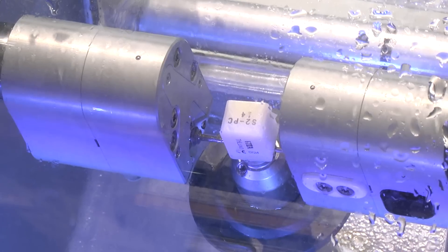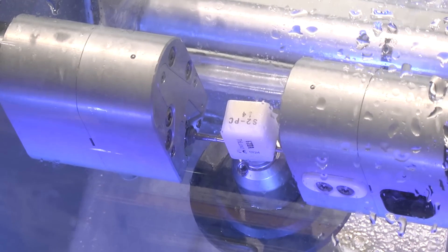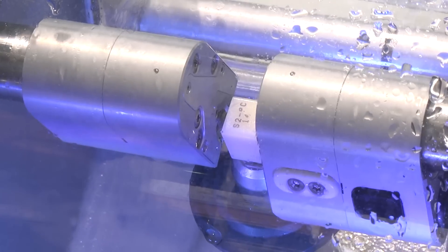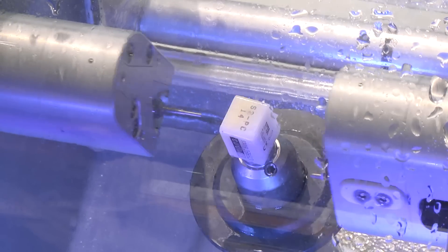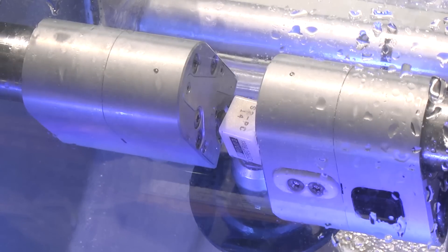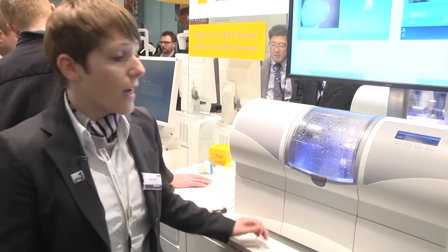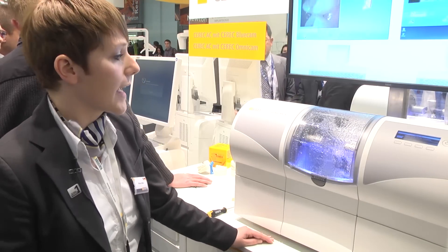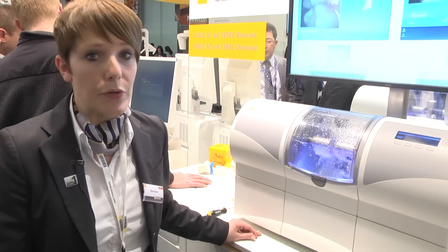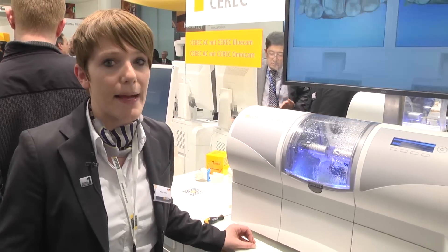At the beginning of the milling process, the burs check whether the block is in the right position — it confirms that you've inserted the right block with the right position and the right side. Then the burs start milling the restoration — the crown in our case. The water is for cooling the burs. The milling process lasts about 10 minutes, always depending on the material, plus or minus one minute.